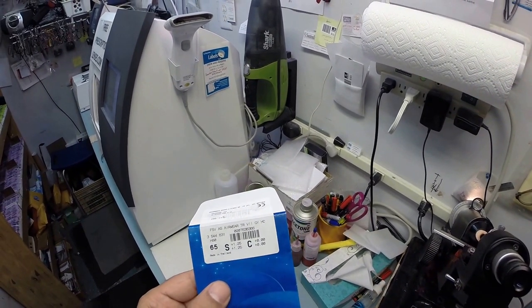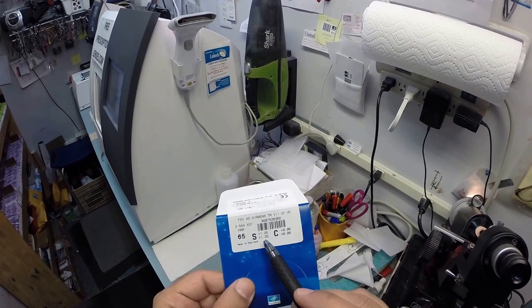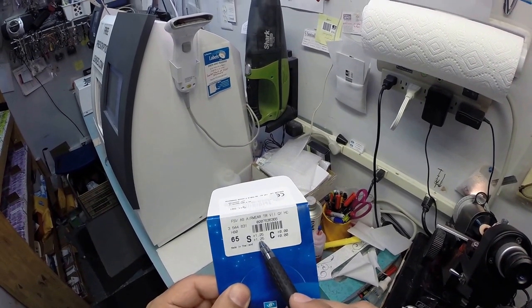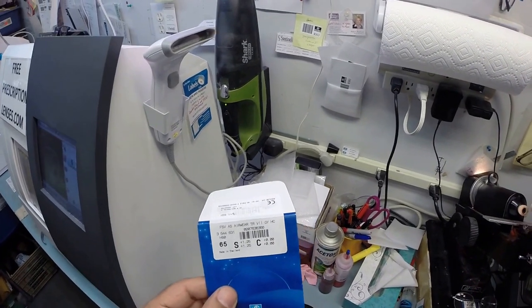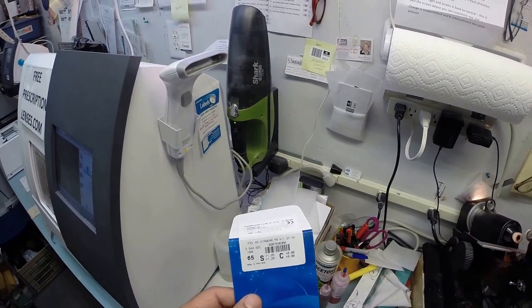So you need five steps of magnification to see clearly. Now, with your glasses off, everything is a little bit too small. When you put your glasses on, it will actually magnify by five steps to bring everything into focus for your farsightedness.